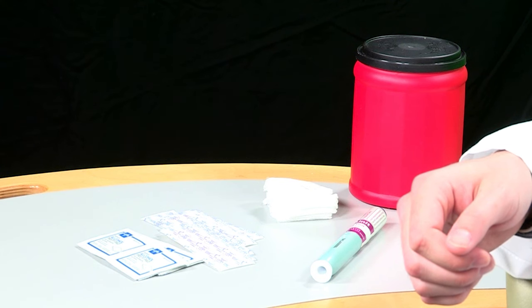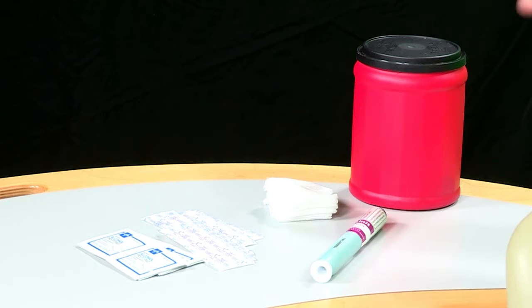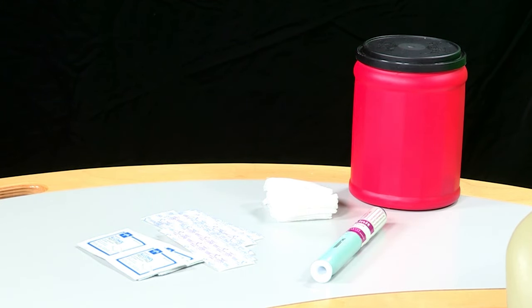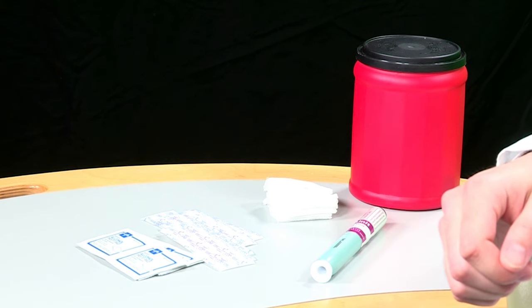Gather all materials needed for your injection. These materials include alcohol wipes, cotton balls or gauze pads, adhesive bandages, and the sharps disposal container.